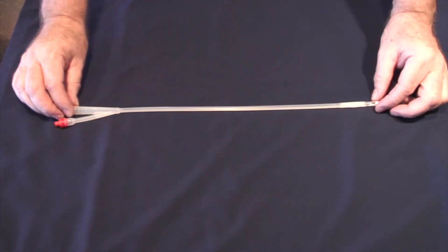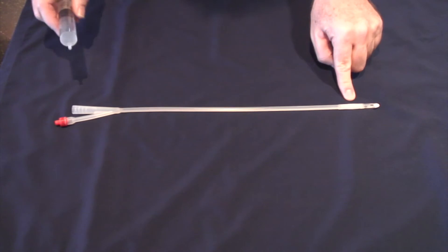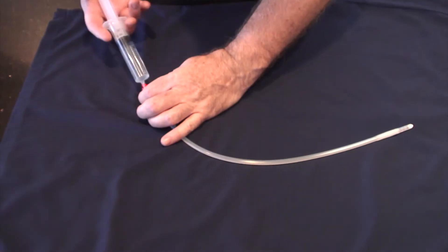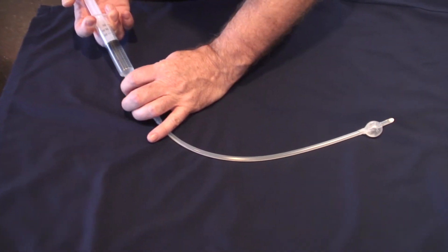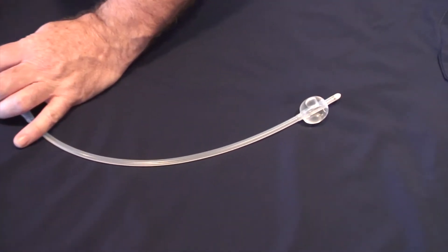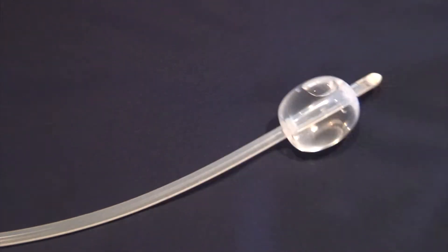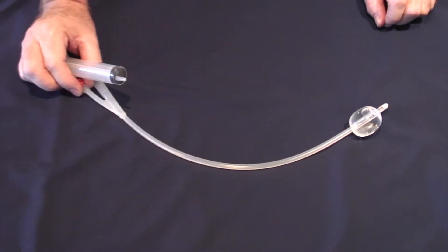This is a Foley catheter. It is called a Foley catheter because it has a balloon at the end which is inflated using 20ml of water to retain it in the patient's bladder.